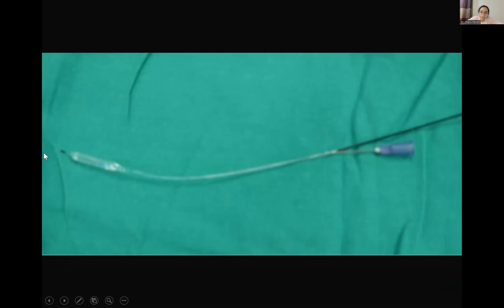So once the wire is in place, you are going to load this balloon over the wire. The wire will go here and the proximal end of the wire is going to come out from here. So these monorail balloons are also called rapid exchange balloons. The advantage, as the name suggests, is that it allows rapid exchange of devices. You don't even need an exchange length wire, even a smaller length wire, because it's coming out from here. A normal length wire can be used to change this balloon with other devices.